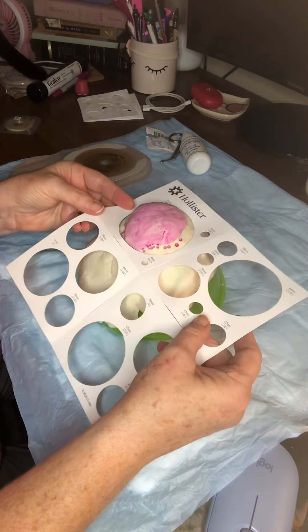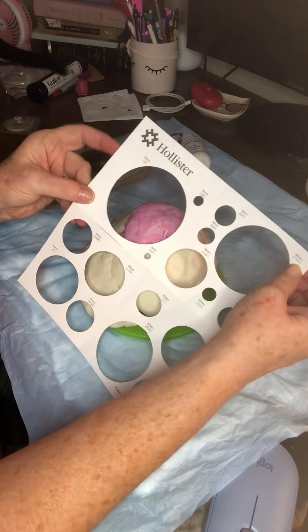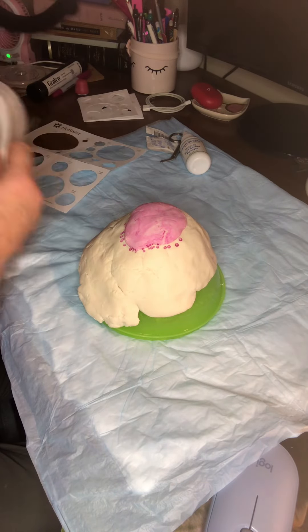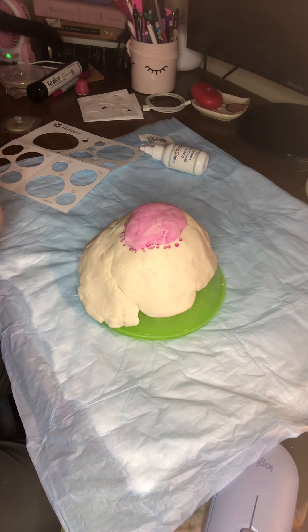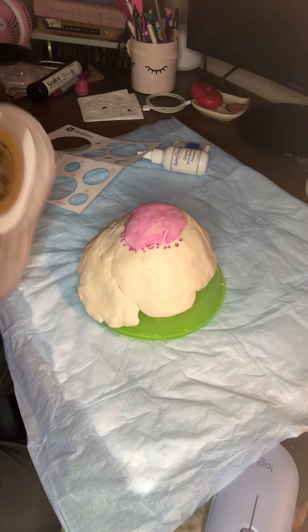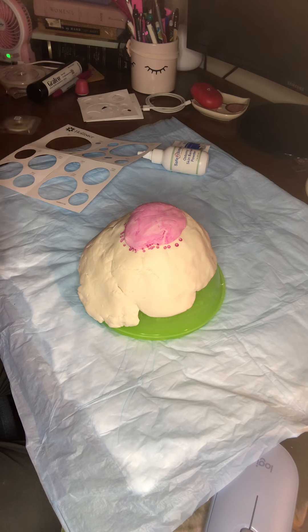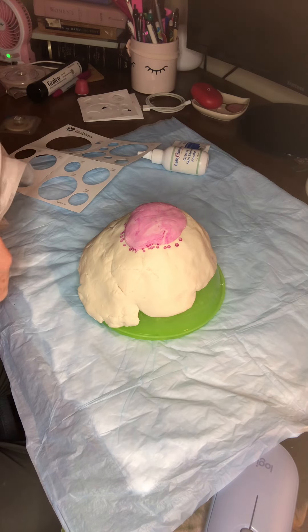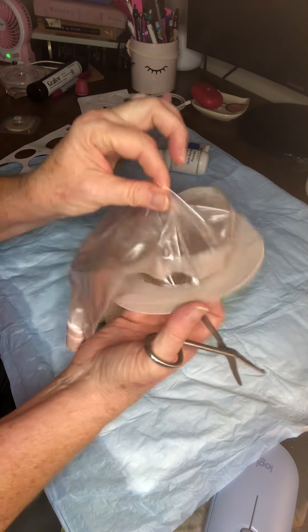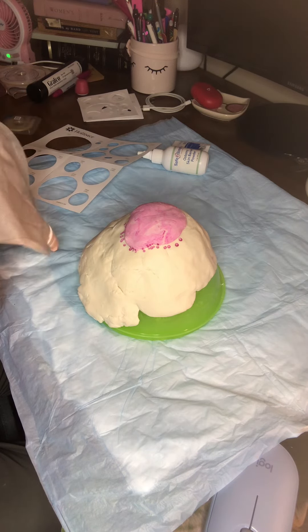First you're going to measure — that one's way too big, one's too small, so it's going to come somewhere in between. We're going to try and get on this one-piece flexible as close as we can. I know it's between the three inch and the two and a half. I'll cut it in an oval shape because my stoma is a little bit oval. When you're cutting a one-piece, make sure you pull that pouch open a little bit, otherwise you're going to pop the pouch.